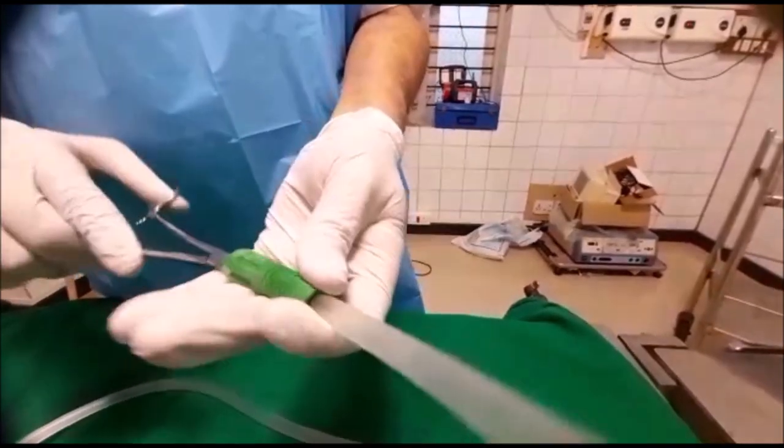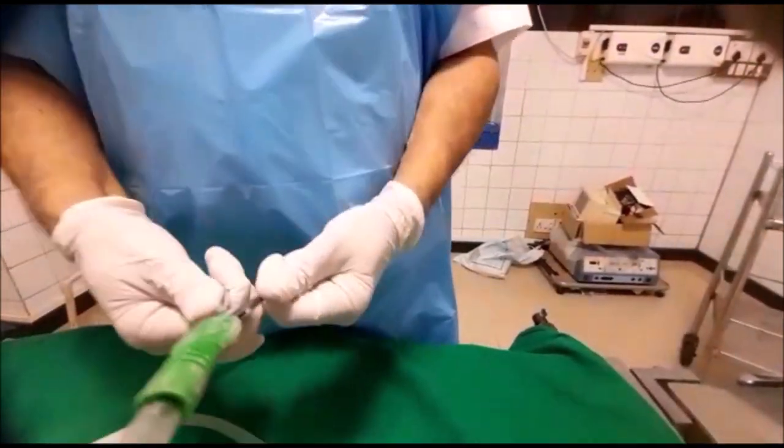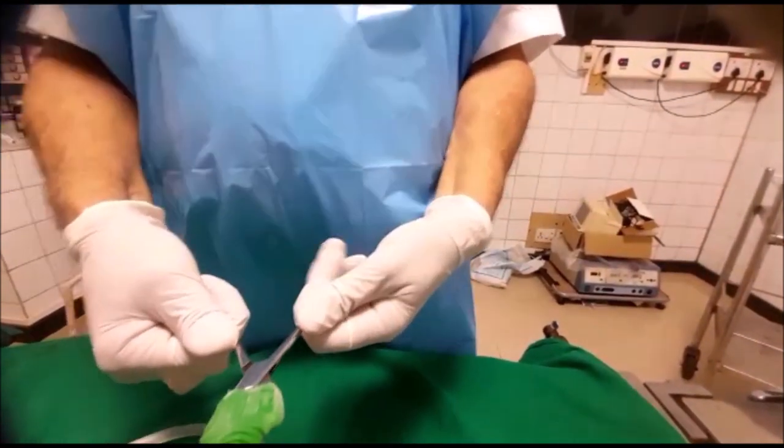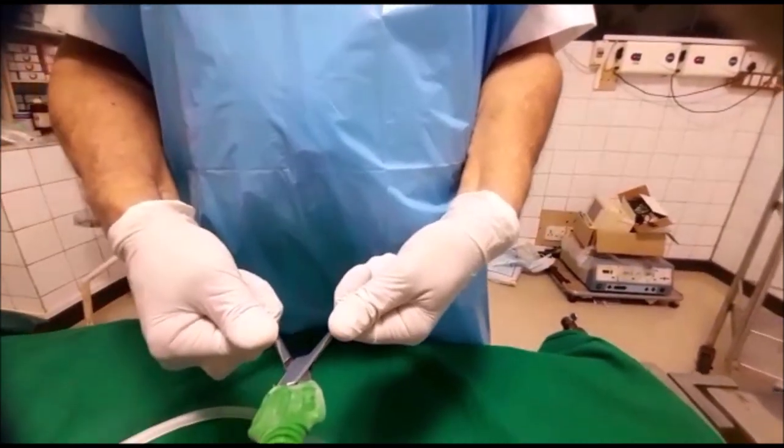You can insert here like this, take this like this, and apply pressure like this to dilate the suction tube. You may have to keep it for 20 to 30 seconds like this.